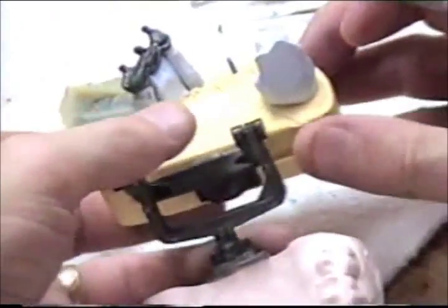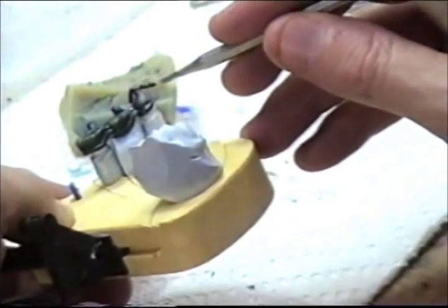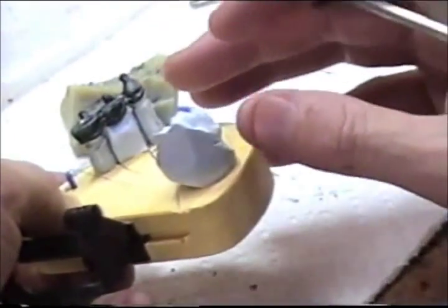I'll do the same on the lingual. Once again I did not flow into the middle of the joint here. I just placed the beads on the outside to hold it in place, and I'm holding it in place for my bar here that I'm going to place.